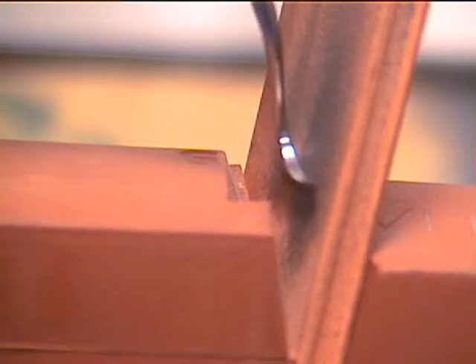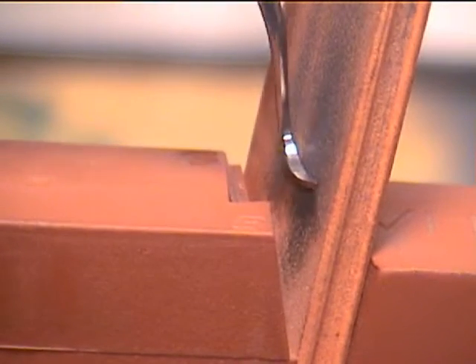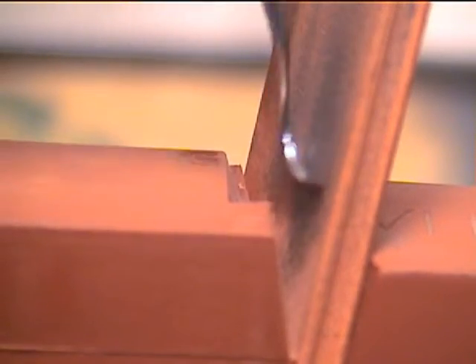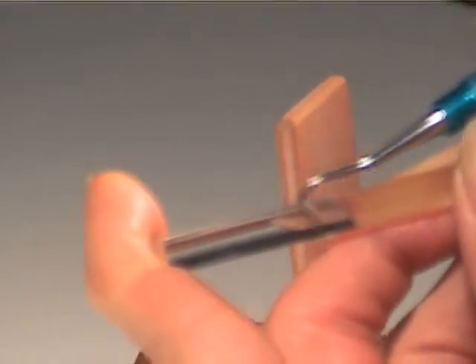Move the H-6-7 to the other side for the opposite edge. Use short push and pull strokes and rock the instrument back and forth from heel to toe. A sharp edge will dig into the test stick.